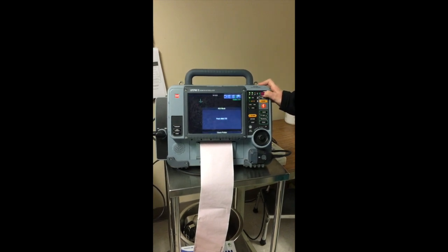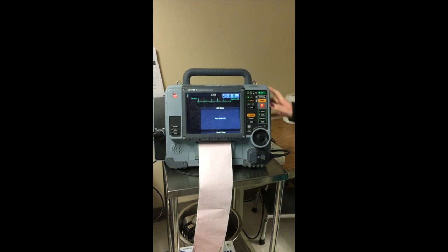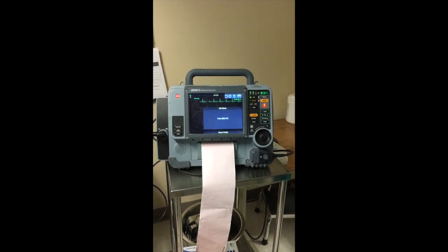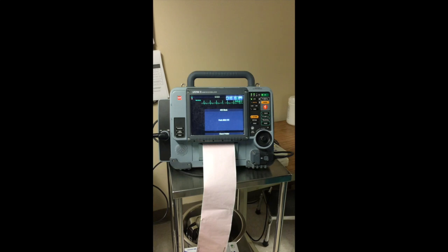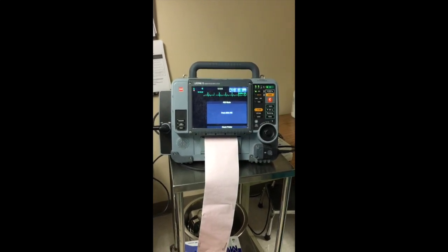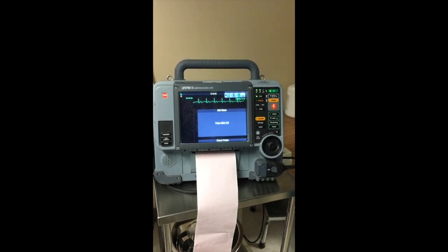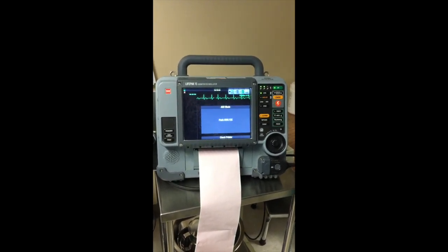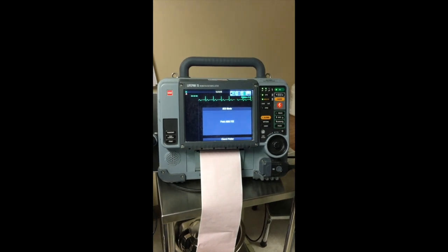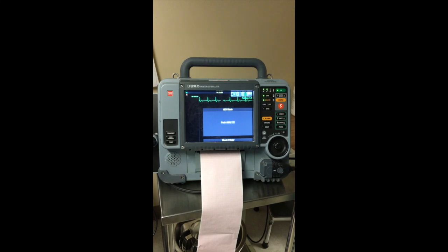And so it has to be pushed in the middle, and you kind of have to hold the button for a few seconds. So when it turns on, it's going to turn on into AED mode. So right now it's on AED mode, and we know AED mode functions that it will do all the analyzing for us. So all we have to do is push analyze, charge and shock, if the patient is in a rhythm that would allow for that.